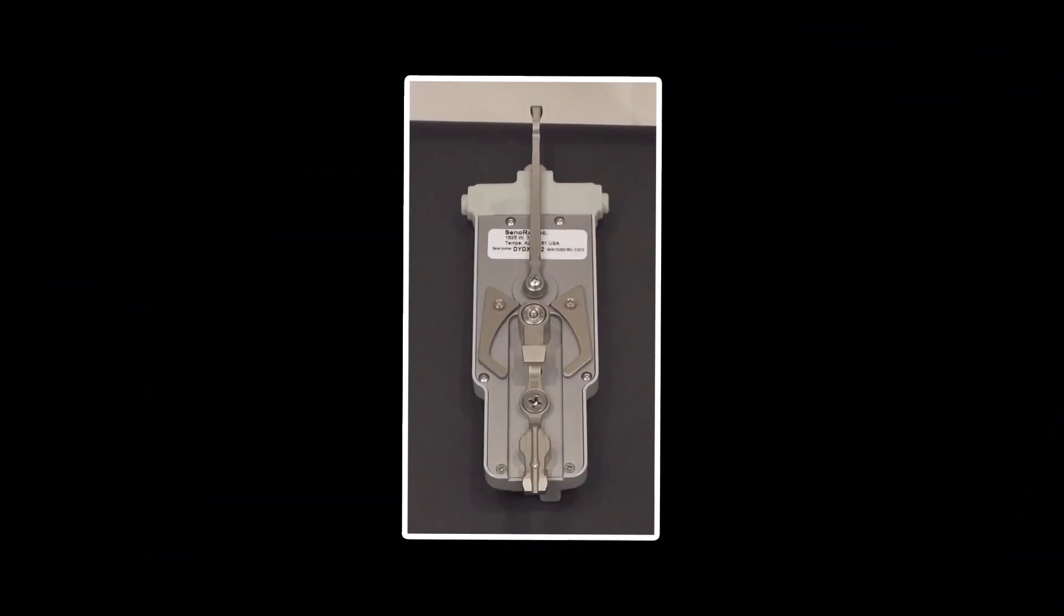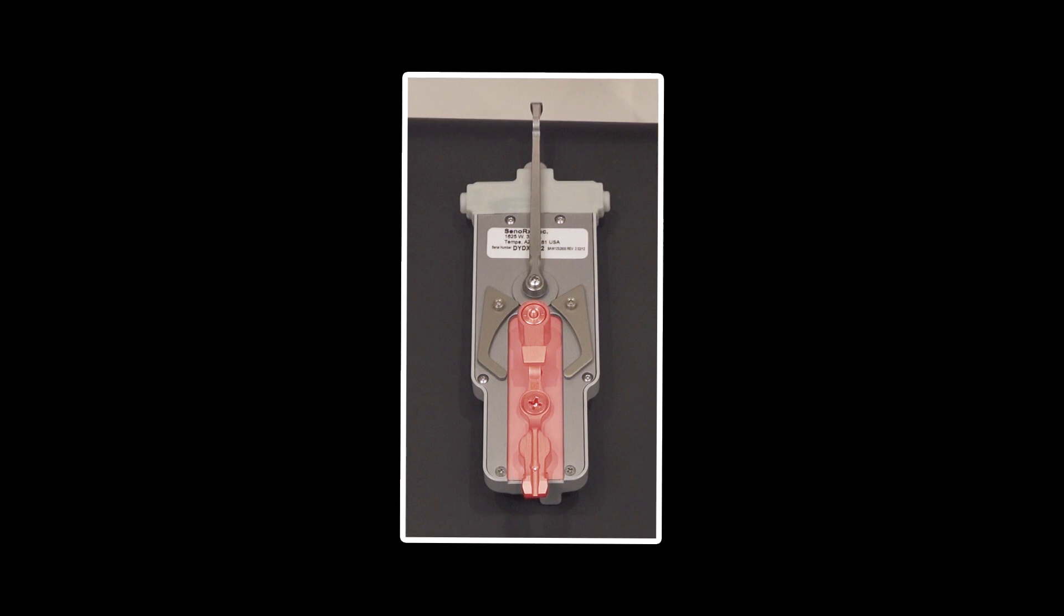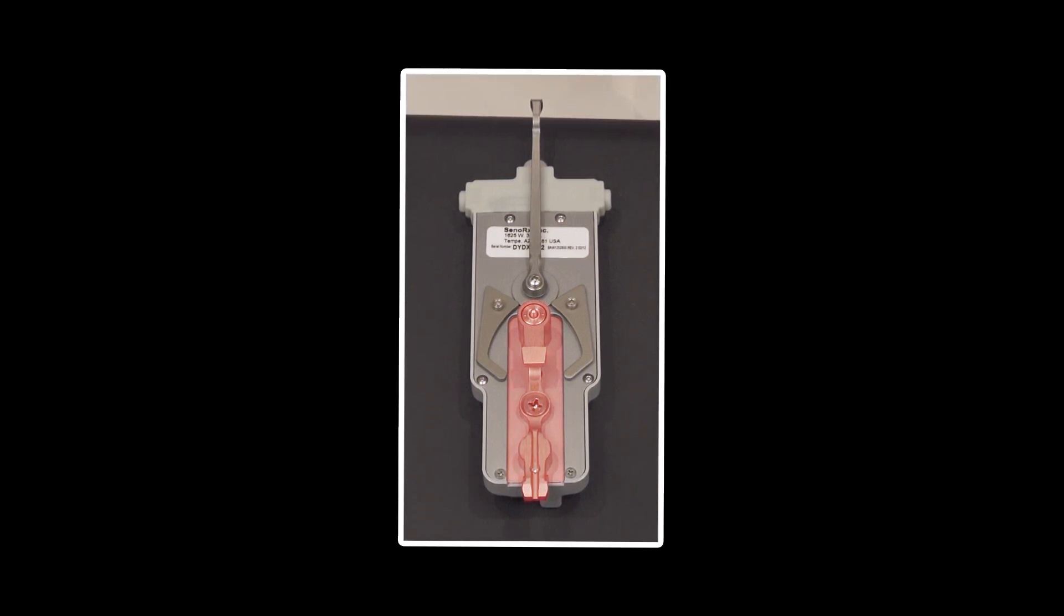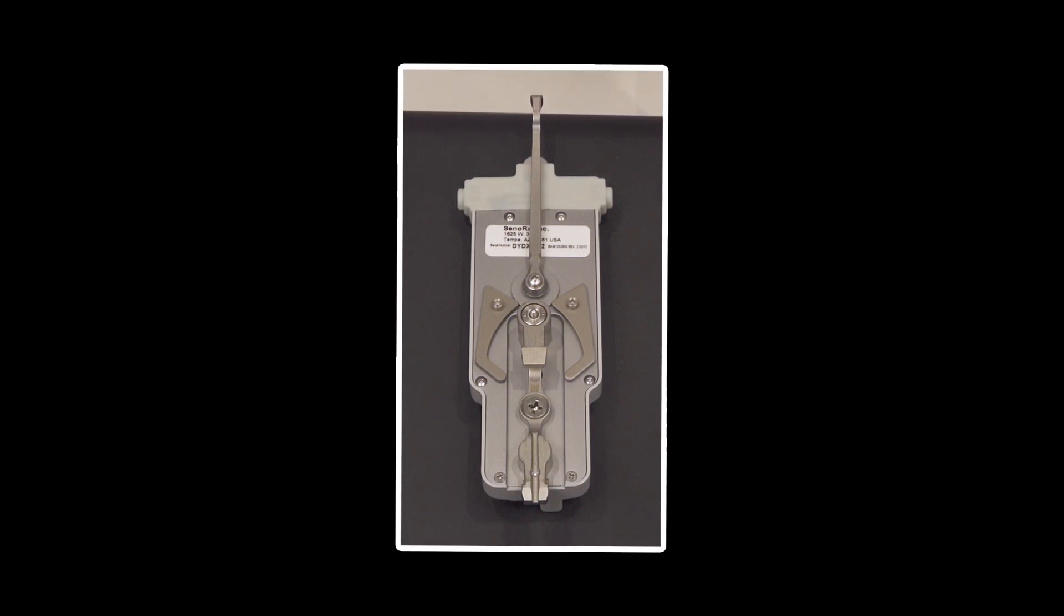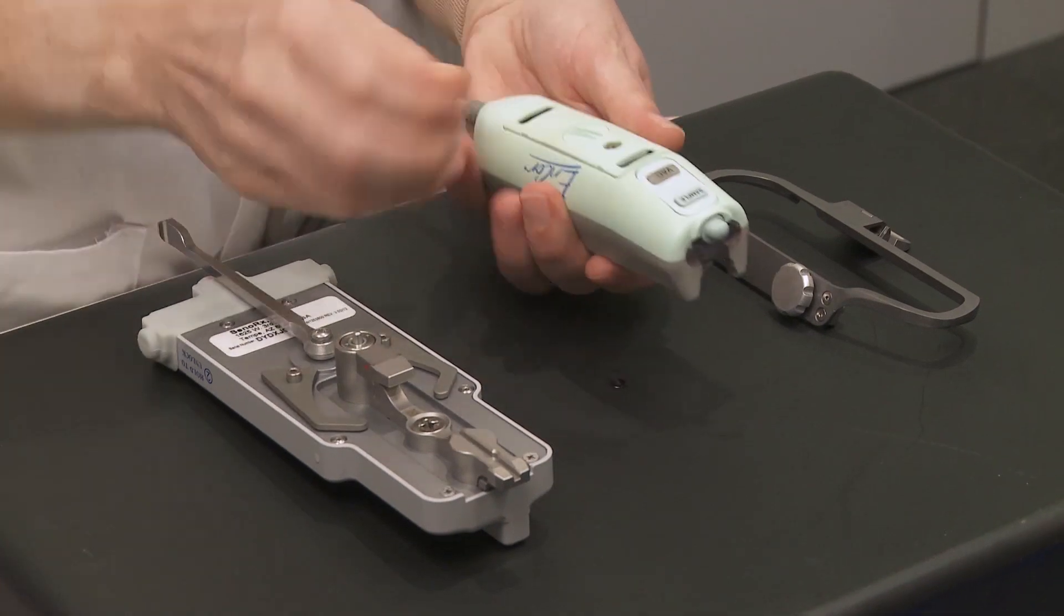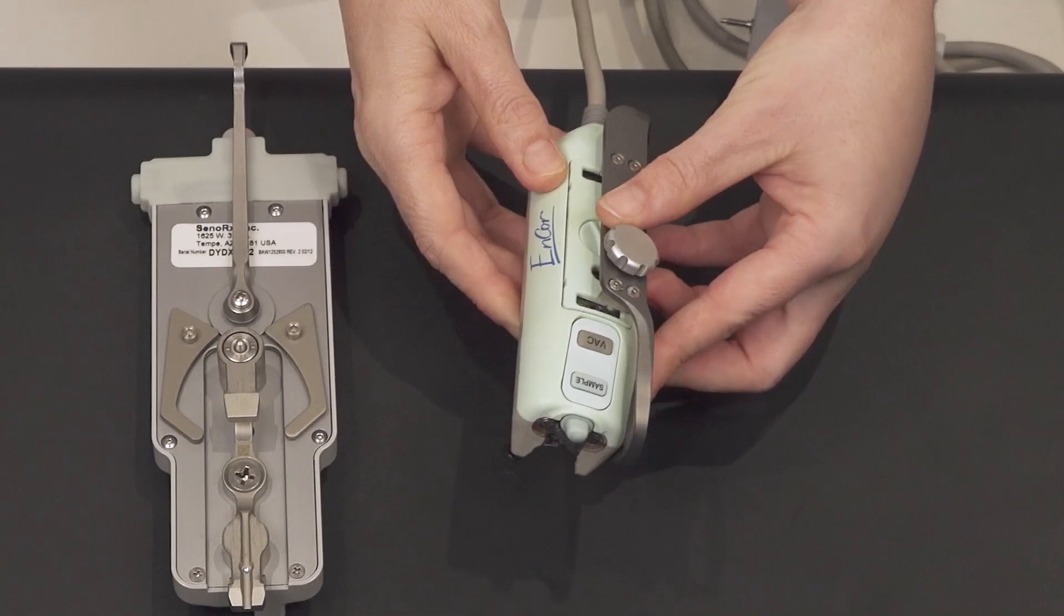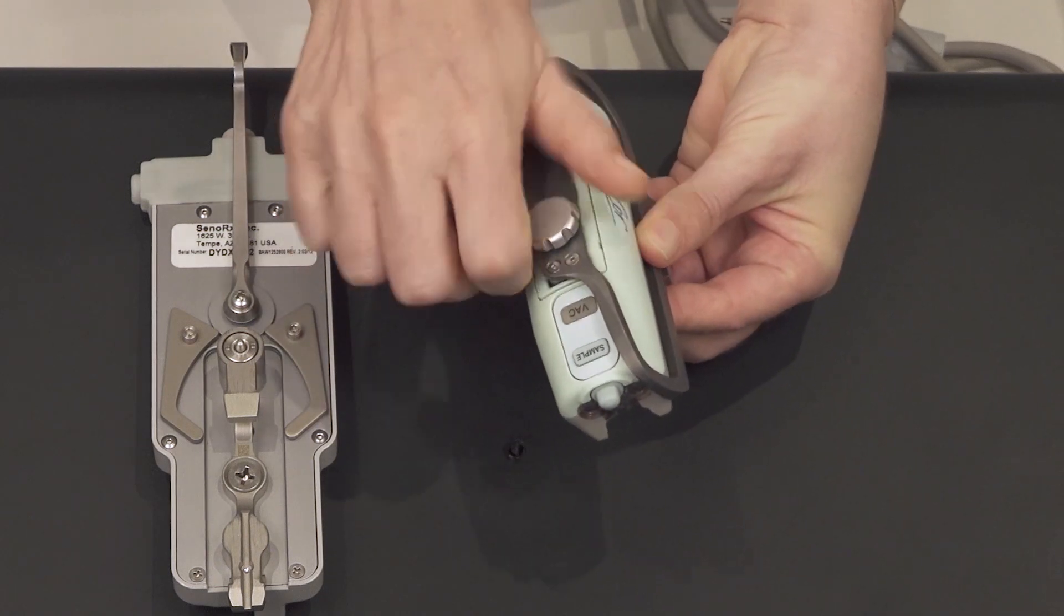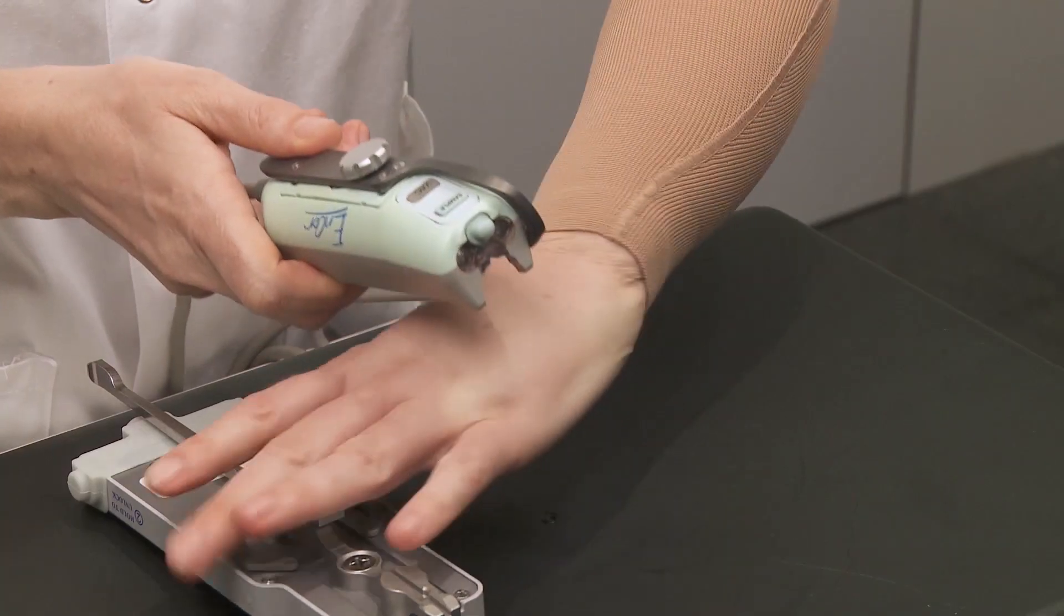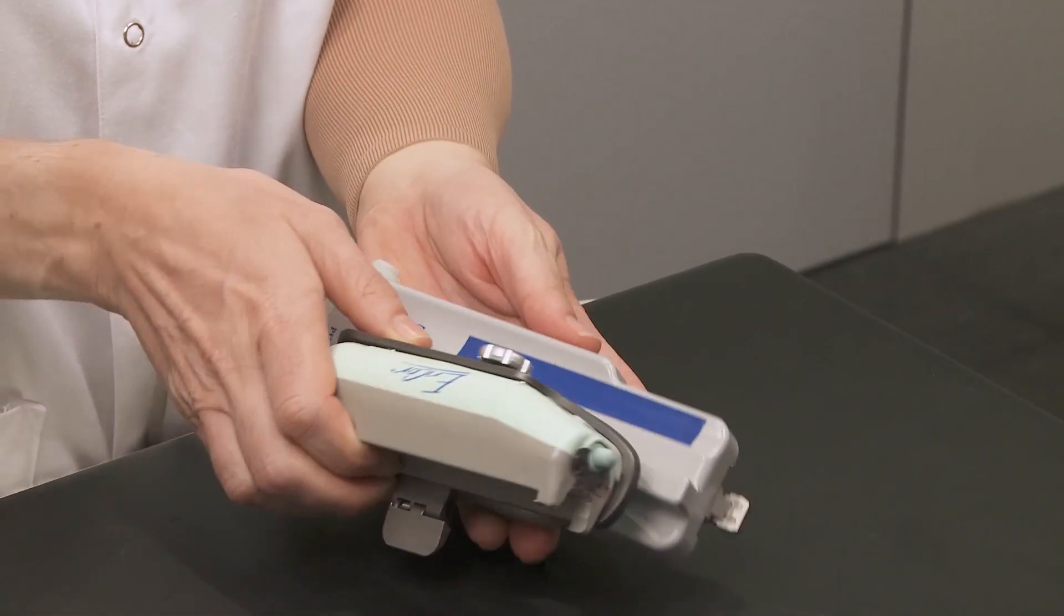As shown, the dedicated Amulet Innovality adapter for Encore, E-Adapter, is already attached to the fire forward piece. Attach the Encore bracket to the driver and adjust it. Attach the driver to the fire forward piece.